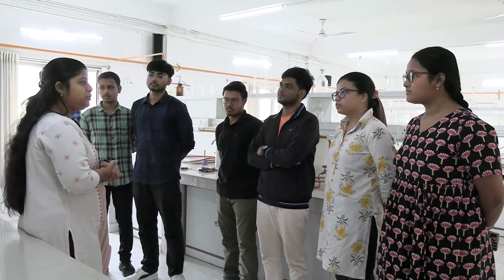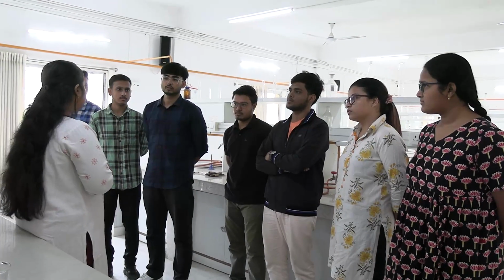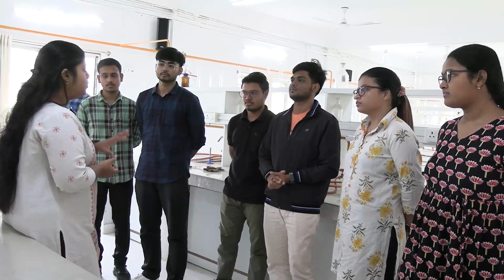Today we will perform tests to detect proteins in urine. What are the tests we will perform today? Heat acetic acid and sulfosalicylic acid. What is the principle behind these tests? Denaturation of protein. The secondary, tertiary and quaternary structures are denatured and only the primary structure is maintained. Heat is one of the denaturing elements, and sulfosalicylic acid is also a denaturing agent.